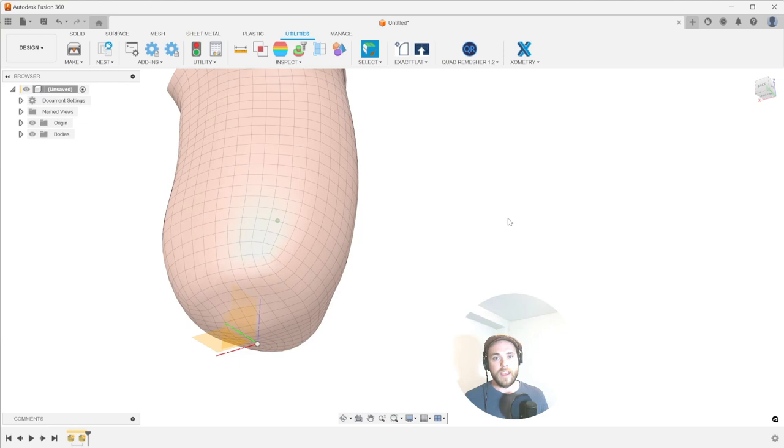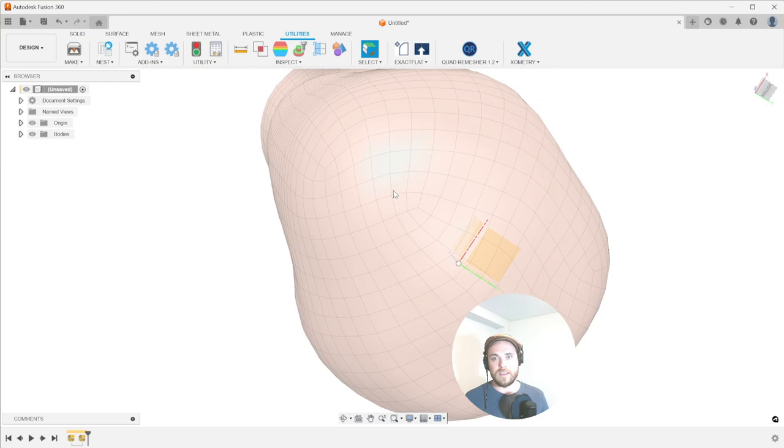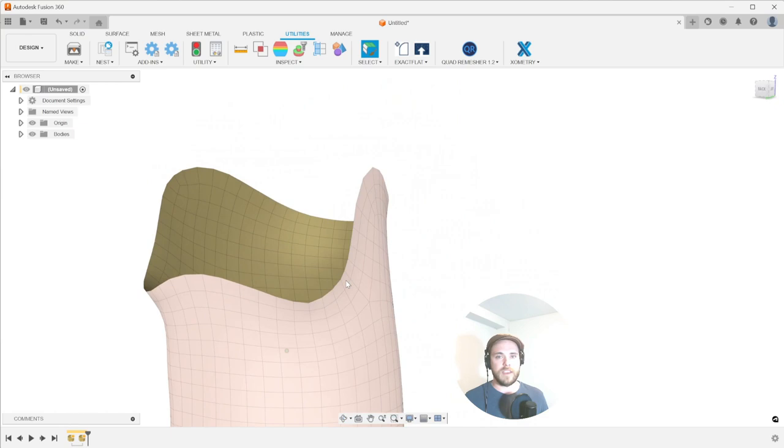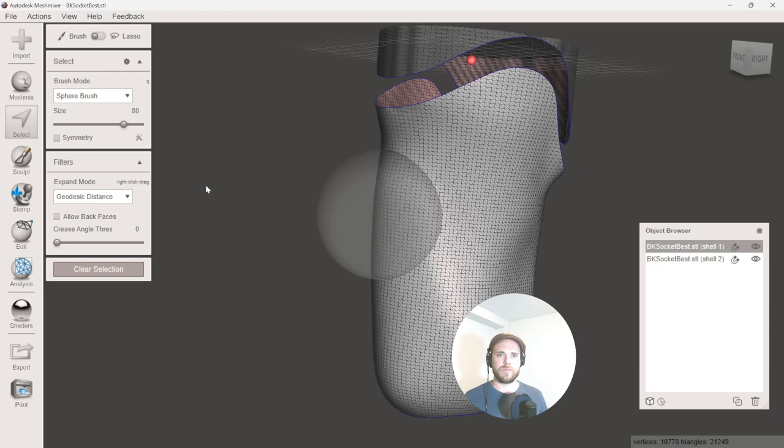So the things to watch out for again is if you wanted your distal end to be cut off down here, you don't have a smooth edge. And indeed these UV lines just go across and travel. So by having the open edge on the bottom, you would be able to control that much nicer, but look at your top edge. It's just there. It's everything that ZBrush offers to be able to give you that nice result. This is doing as well. Let's quickly bring in our other version. I believe I did.